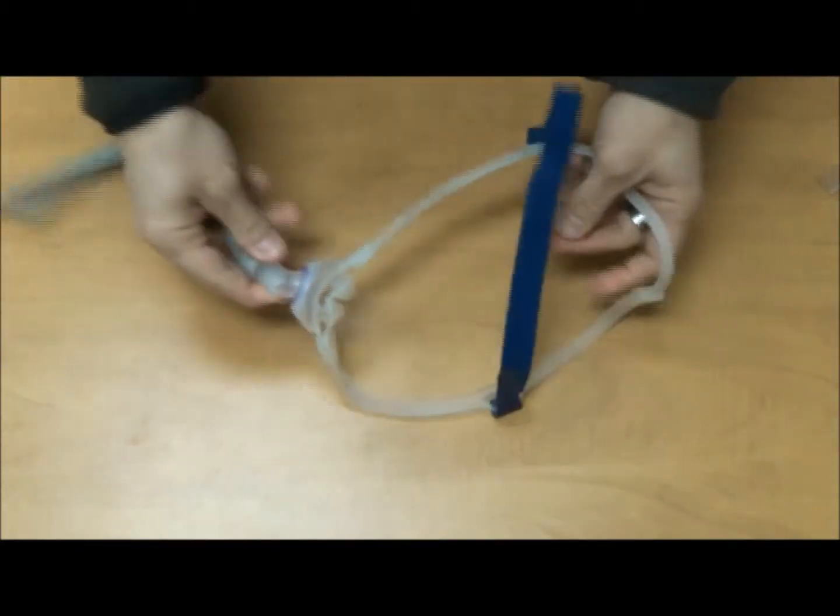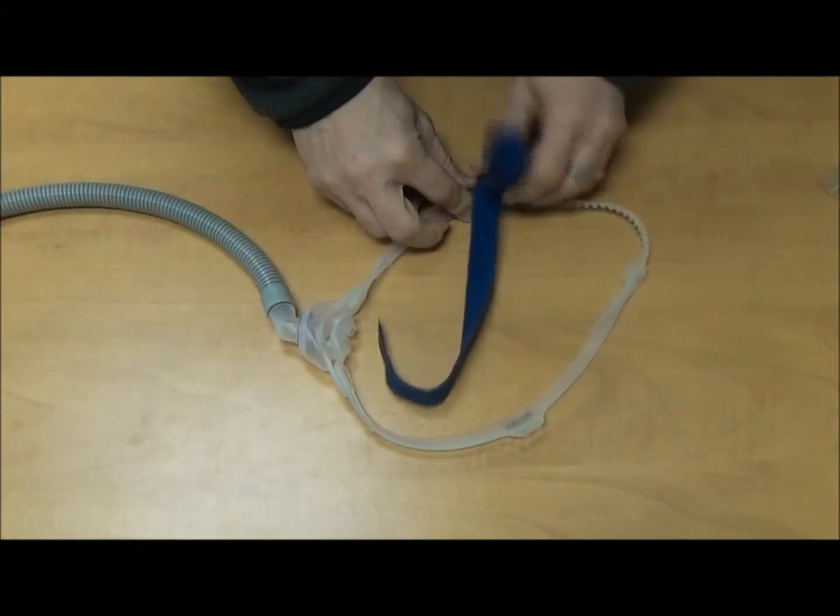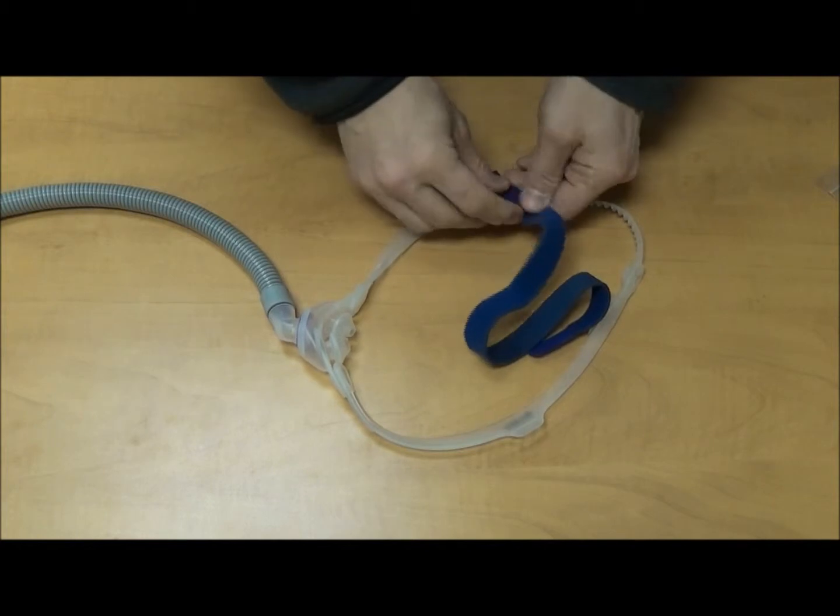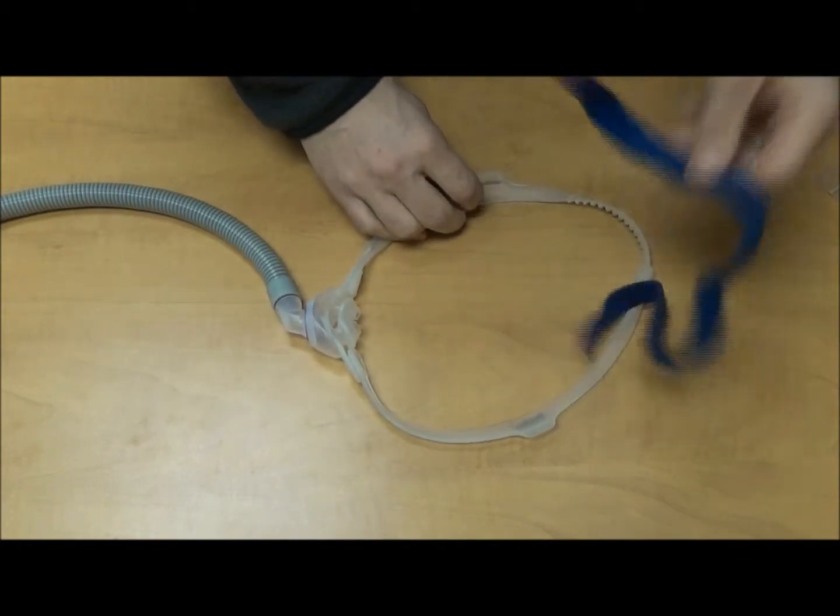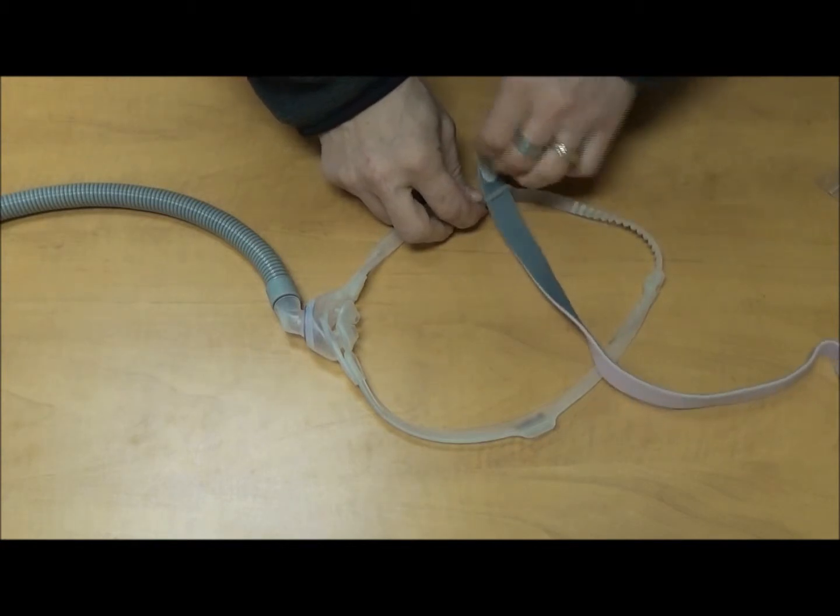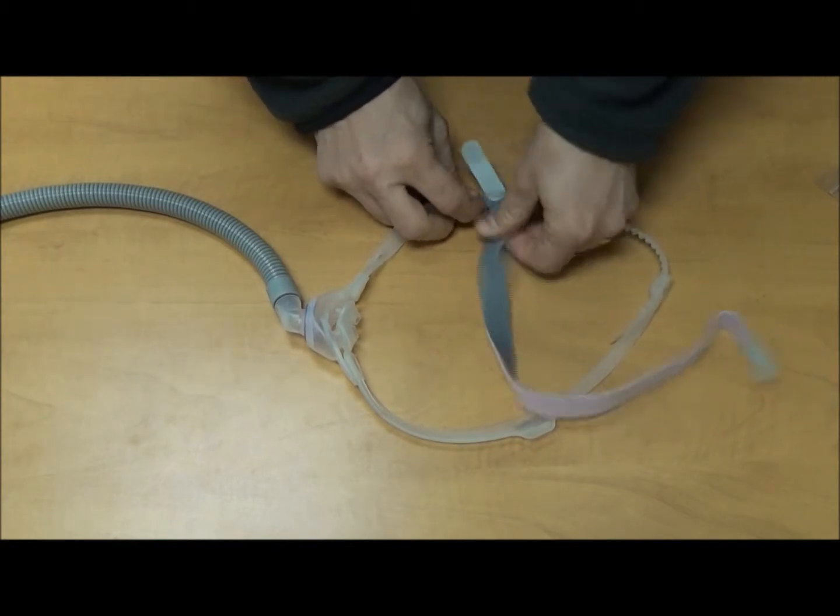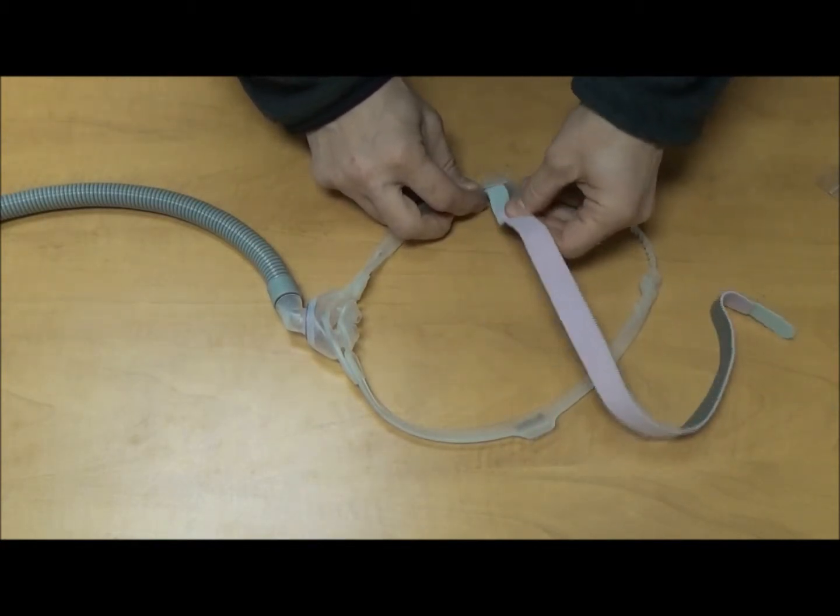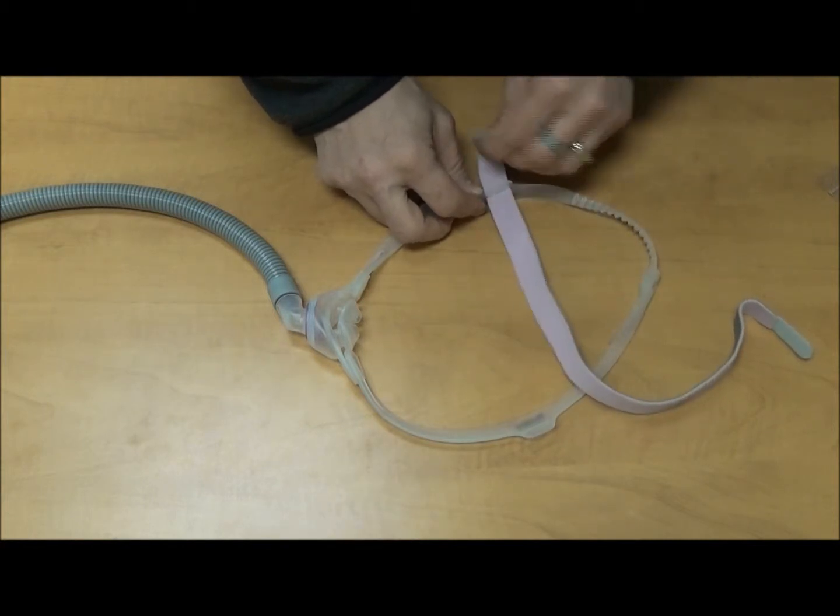We're almost there. Believe it or not, one more step. We're going to take this blue guy off of there, throw him off to the side. Yeah, we're going to get this creative. There we go.